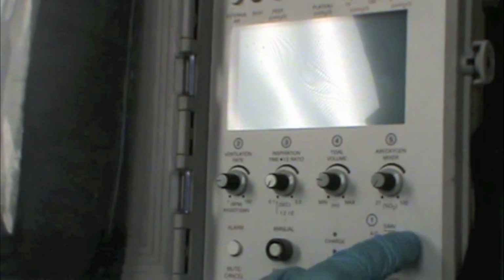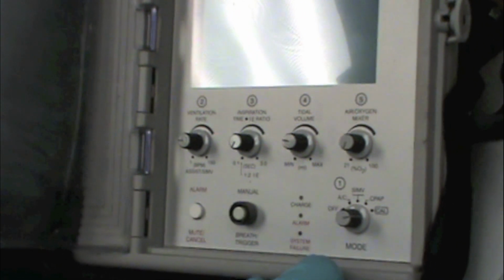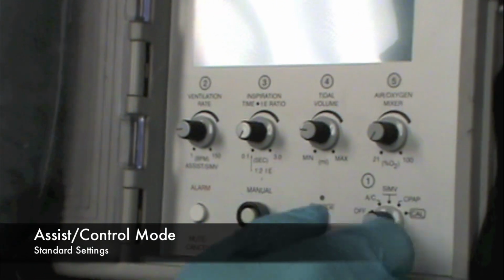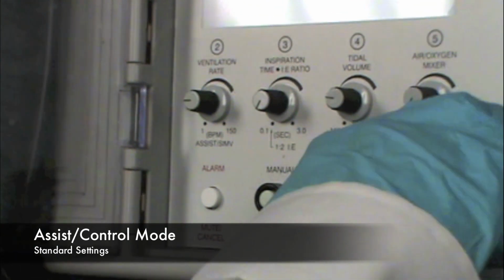So then you're going to figure out what mode of ventilation you're going to use. And we'll talk about modes of ventilation briefly, but this certainly is not a substitution for a true ventilator management course. So commonly, a patient that requires full support from the ventilator is best served in the AC mode. So this stands for assist control.